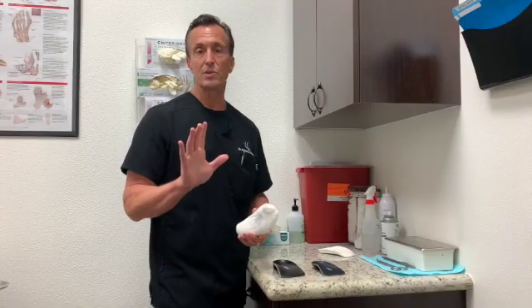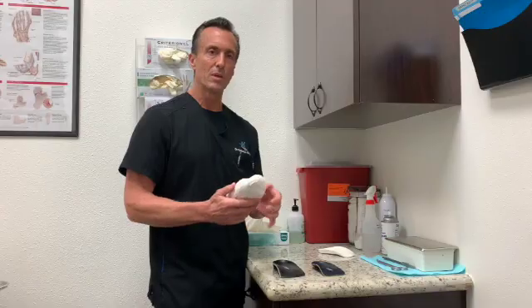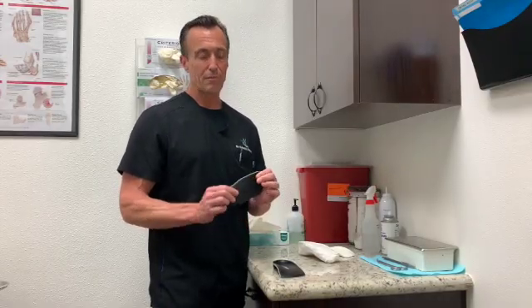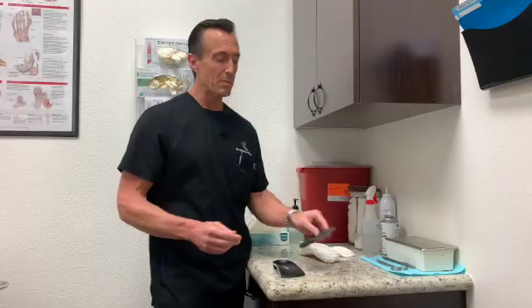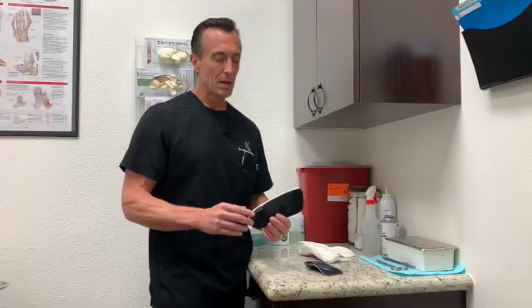There is also a laser and a foam impression type of mold. I think they do a great job, but I like the way that plaster gives the patient an exact mold held in a position. We send ours to a lab that makes a polypropylene, which is a thermal-molded plastic product that flexes, so it's more of a dynamic device. It holds the arch up but it can still flex. The two models are: a thinner model for my athletes and female patients — we can make these for a smaller shoe and a heel — and a more stable product to stabilize the shoe inside of a boot or for a different type of sporting event.